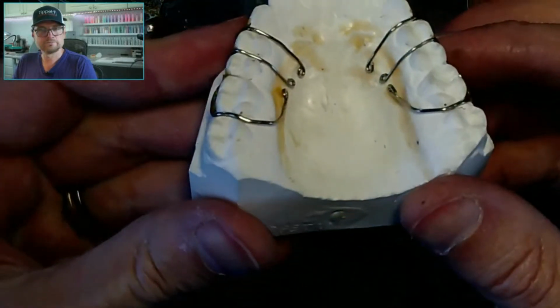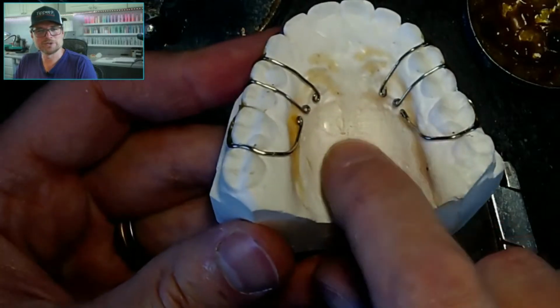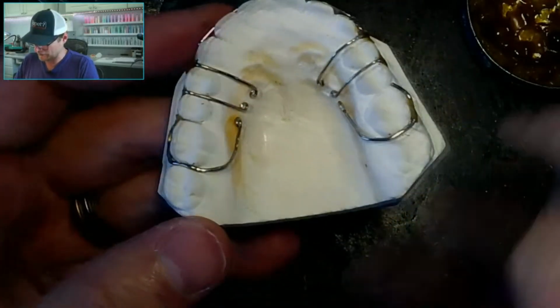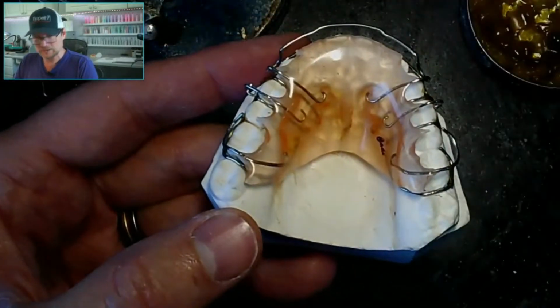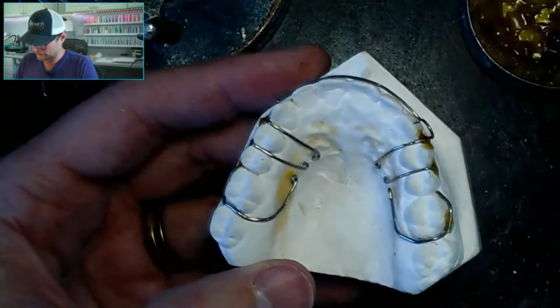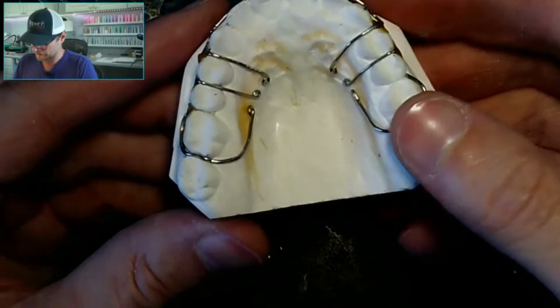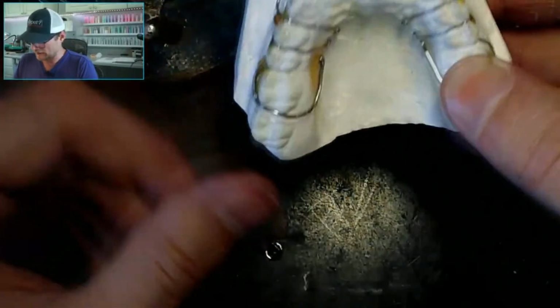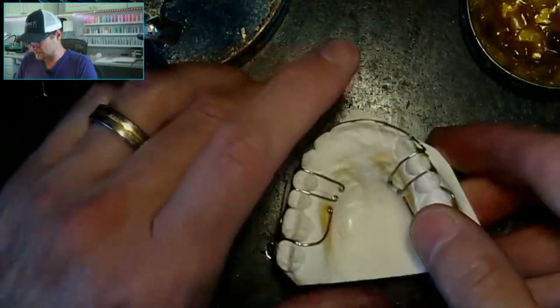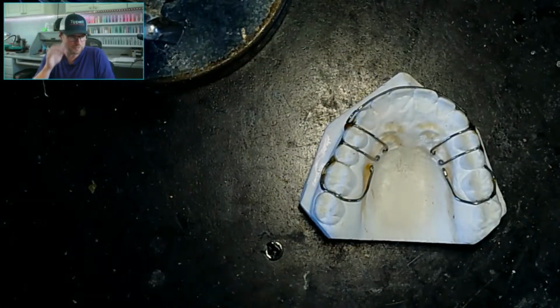Okay. As I notice, I've bent these like I'm going to do a horseshoe, but with the acrylic, I'm going to try to do this again. Not full palate. I don't really want to do full palate. I hate full palate, but that's how they show it in the pictures. So maybe we'll do full palate. But let me get set up. I'm just going to maybe set my camera over here.